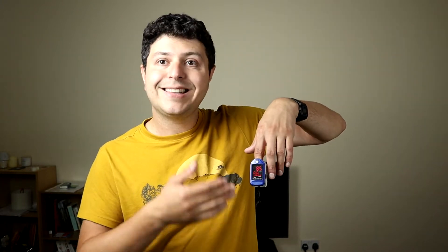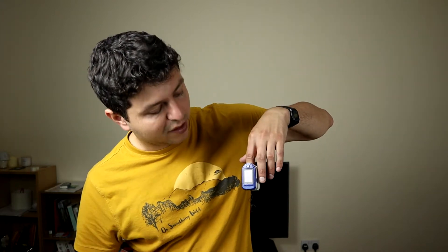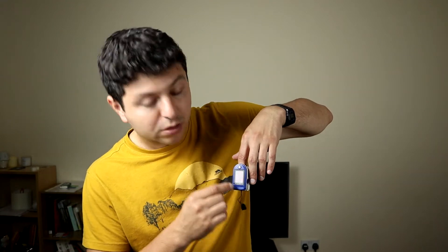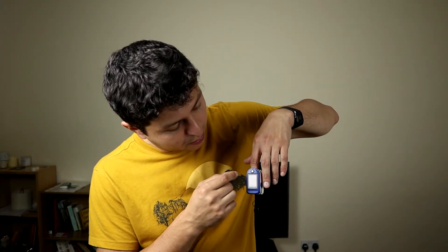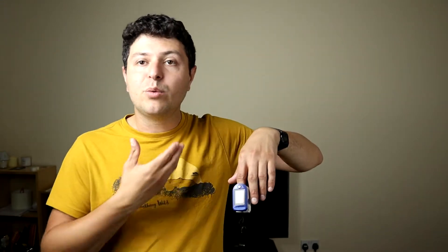The second piece of advice is that you need to let it calculate and average out the values over at least a few seconds. Don't go with the first value you see — I would say wait for 30 seconds or maybe a little bit longer to make sure you're getting an accurate reading. For example, right now I've left it alone for a bit and my oxygen saturation is 97 and my pulse rate is 97, which is quite high, but that's probably because I'm talking and moving around a little bit — so that's absolutely fine.